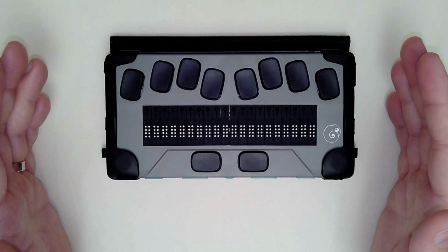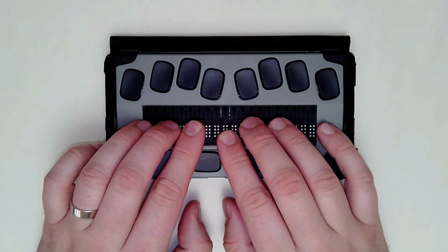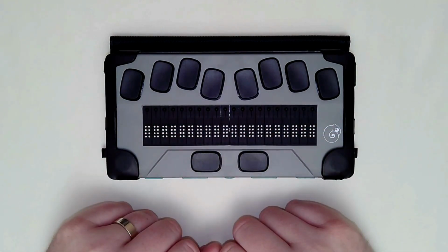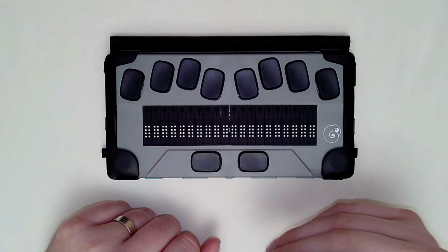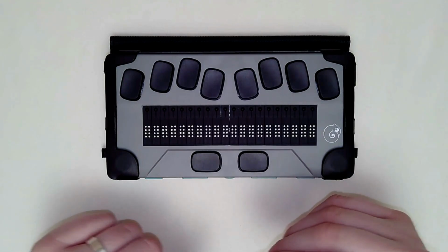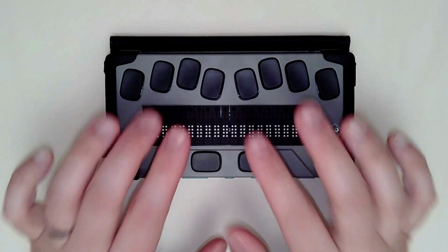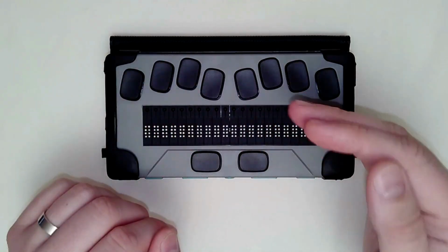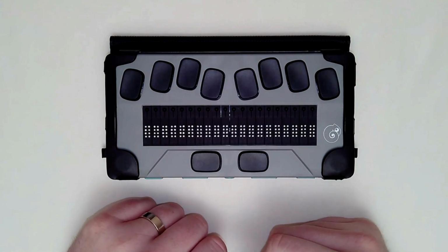Now you might say, awesome, great, what if I pressed S for settings or something like that, and I didn't get to the item that I was looking for? Well, there might be, in some of the menus, more than one item that starts with the same letter. And if that's the case, and the first thing that popped up when you pressed that letter was not what you're looking for, simply press that letter again. So I could press S again, and it would take me to the next thing in this menu or list that starts with the letter S, and so on.